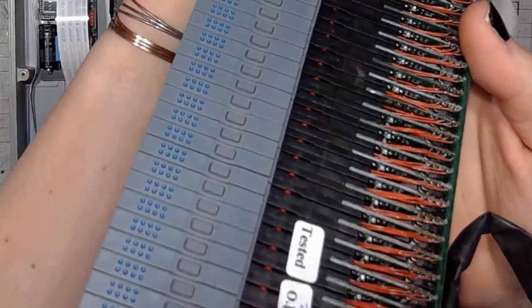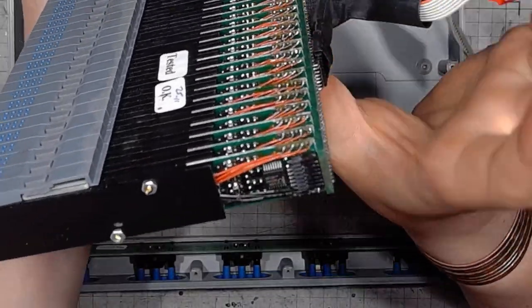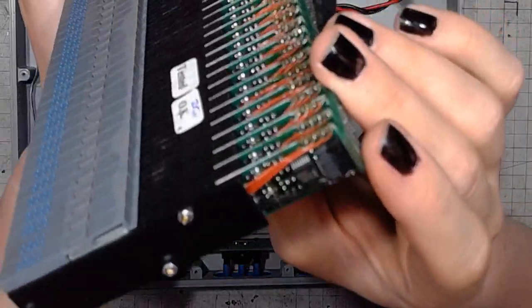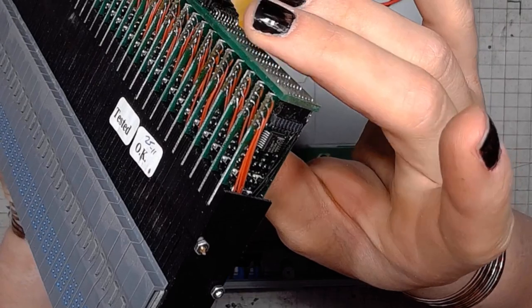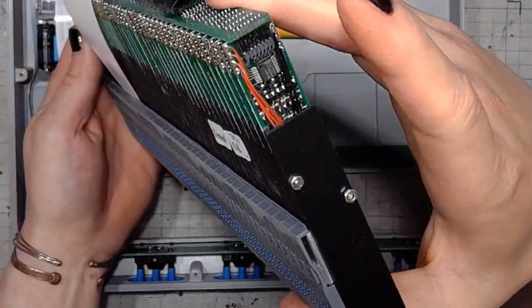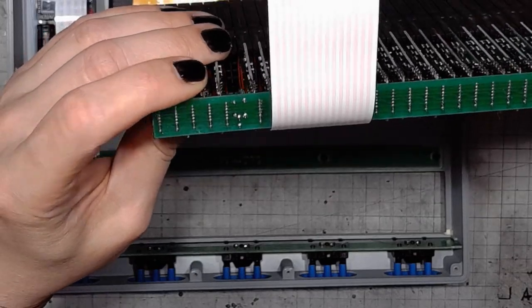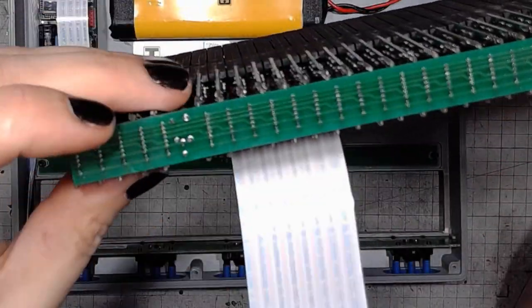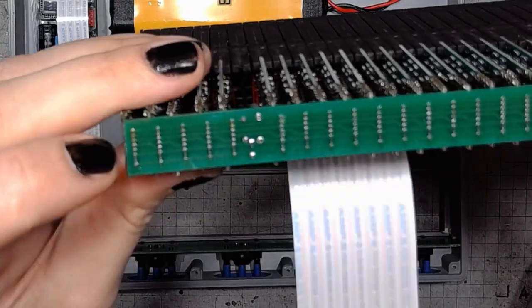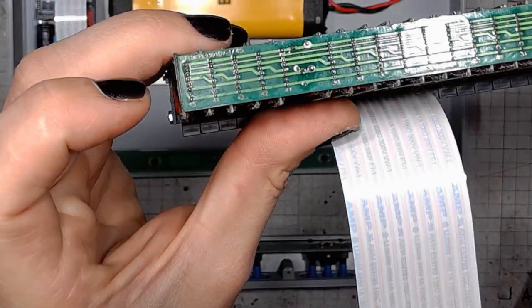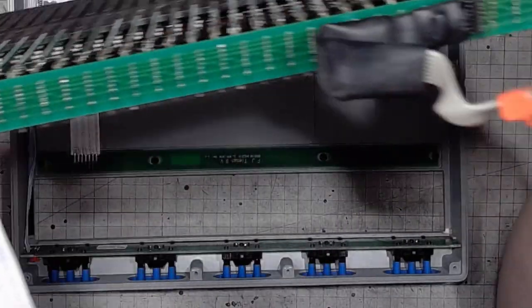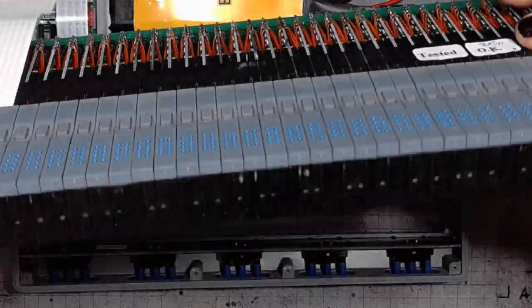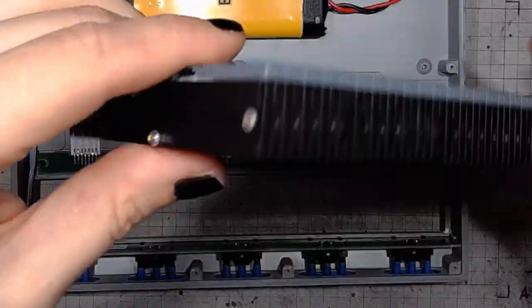An impressive example of precision electronic engineering. All those modules have a driver PCB with surface mount components that is connected via a narrow raster, pins and headers to the common backplane you can see here. And also worth noticing is that every subsequent module has something like an input and output port, like they are connected either in a ring or daisy-chained, something like on the SPI bus.